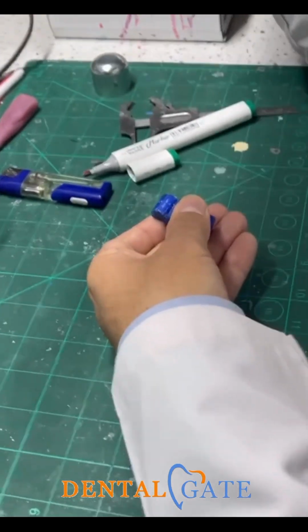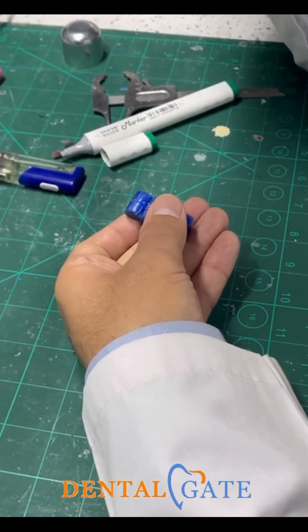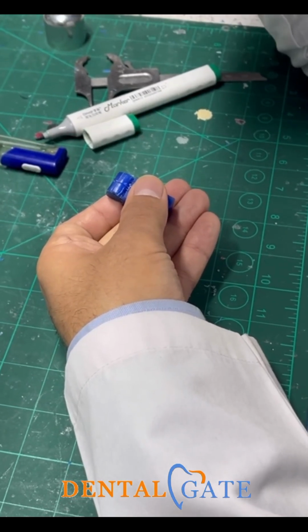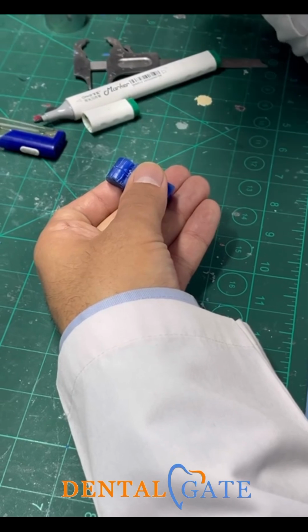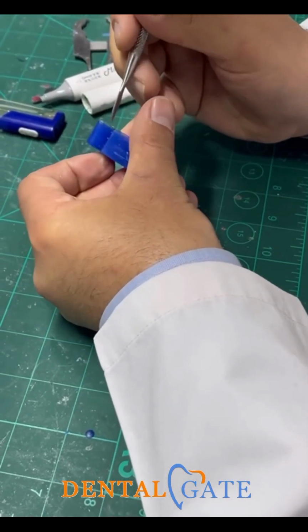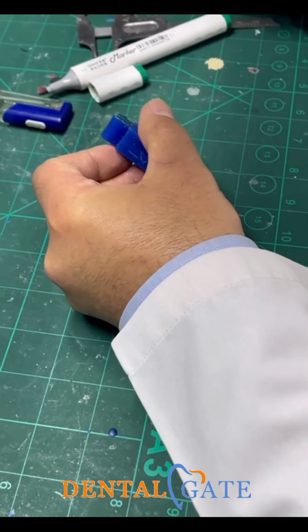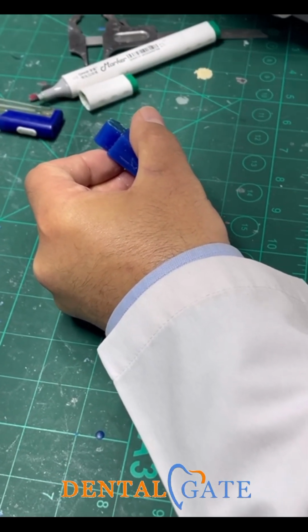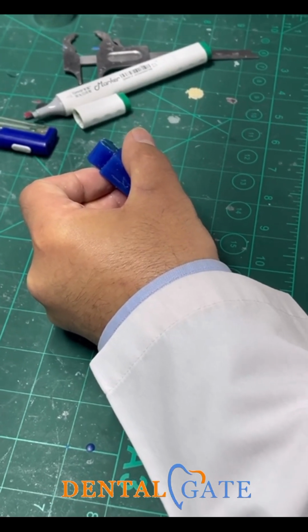But put it in your mind, there is a curve here. We will start from the 5 and I will raise the measurement to the 6. That means I will construct a curve. It is not a straight line. This angle here will be produced by this approach. When you start from 5 to 6, you will start with the curve.